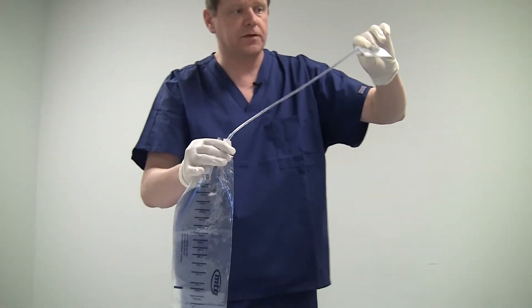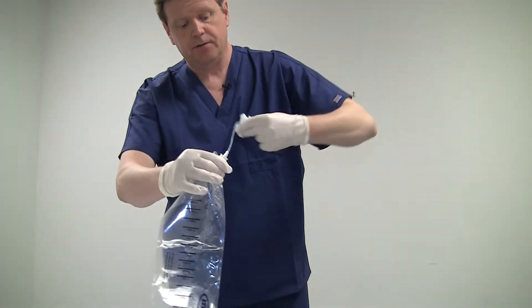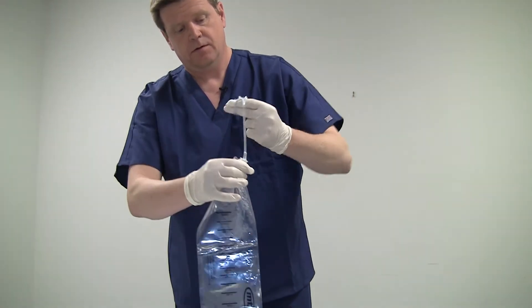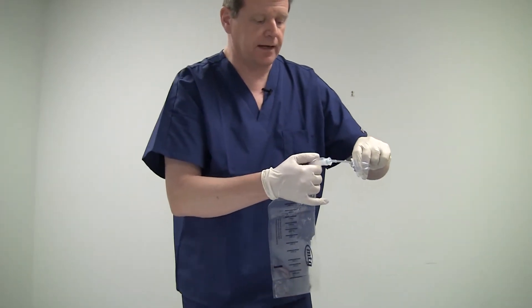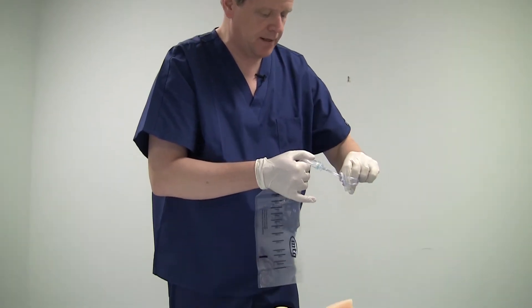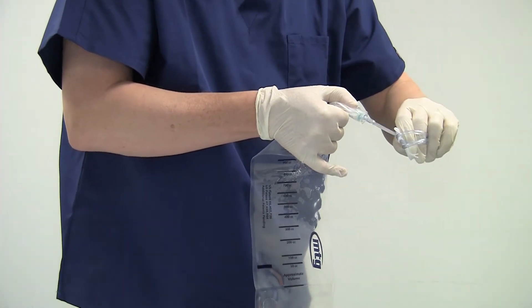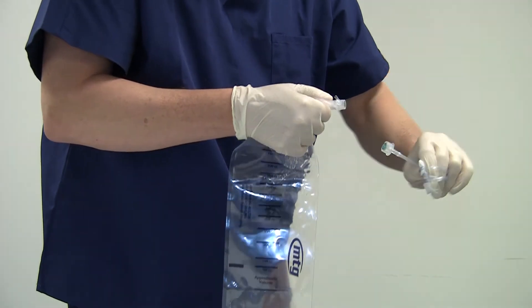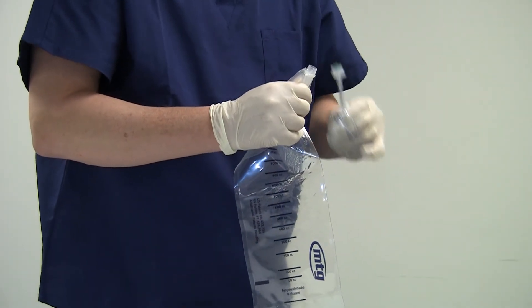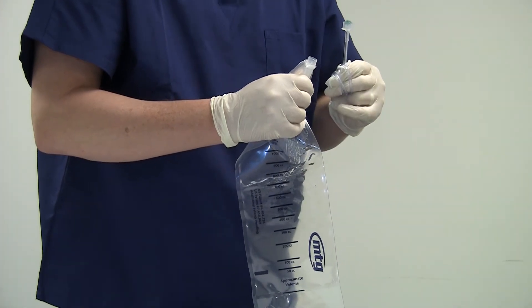Now, we go over to the toilet. How do we get the urine out of the bag? Entwine the catheter around the gauze tissue just like I'm doing here. Go over to the toilet. If we need a sterile sample, this is the other nice trick. Hang onto the pipe inside the bag and with a gentle tug, pull the catheter out of the top of the bag and expose the sterile sample port. As long as I don't touch the lip here, the port is sterile and we can pour a sample off for the lab.